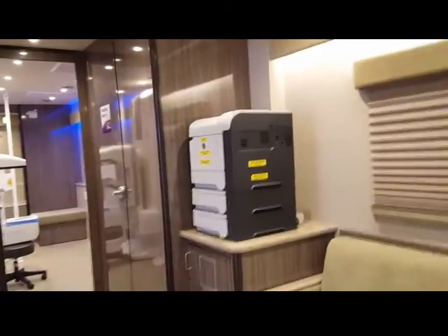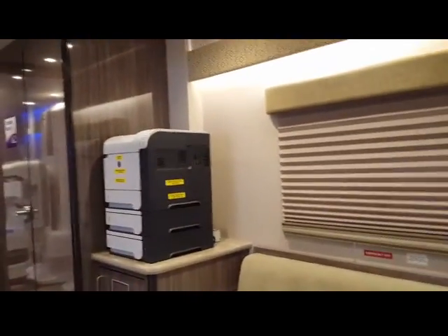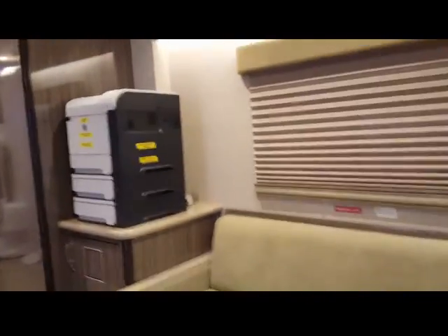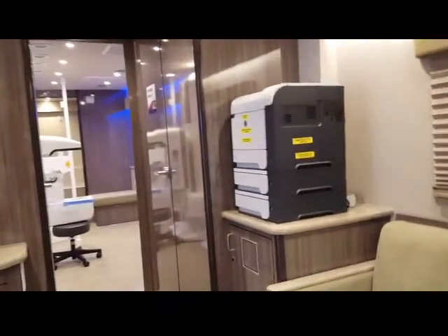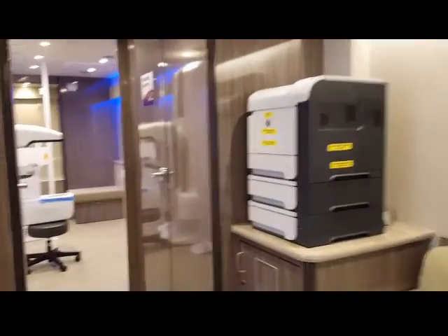Hello, hi, how are you? Good. I do MAMOs where I work, and I'm making a little video for my co-workers so they can see what RSNA is like. A lot of us would like to see how a machine works in one of these mobile units. Well, you don't have to take an x-ray, obviously, but you could just show me the machine. Actually, I'm the vehicle manufacturer — we build the coach and install the equipment. Can I just go look and see what you have in there? Sure, yeah.